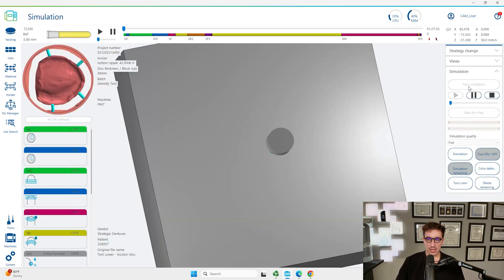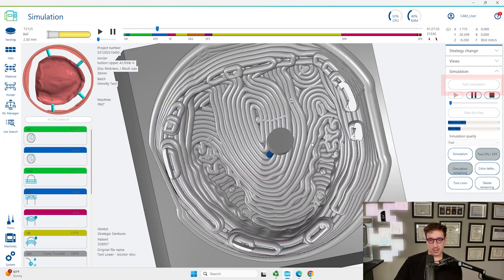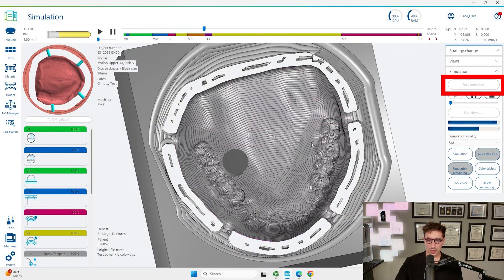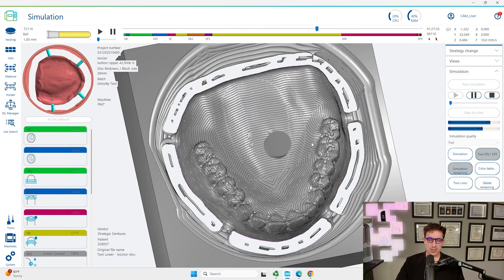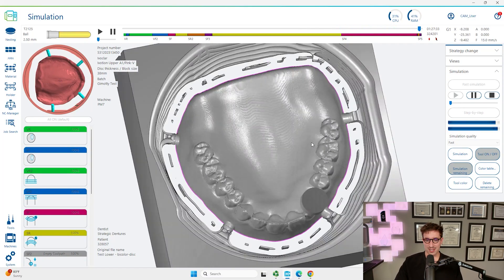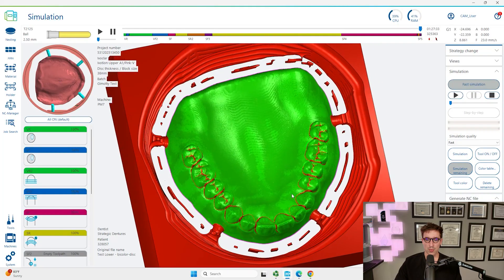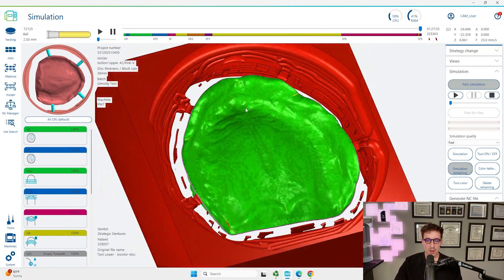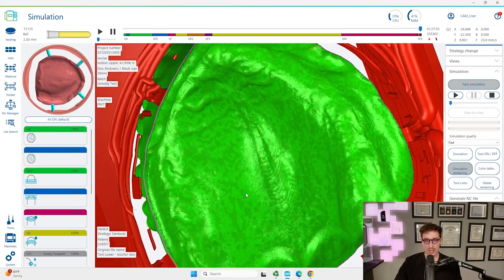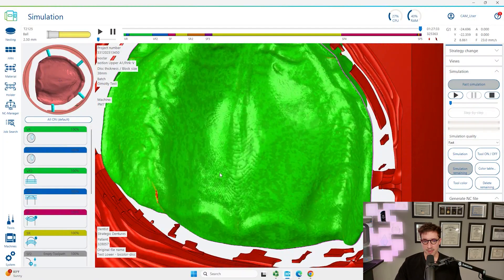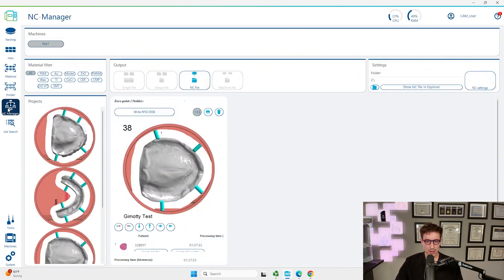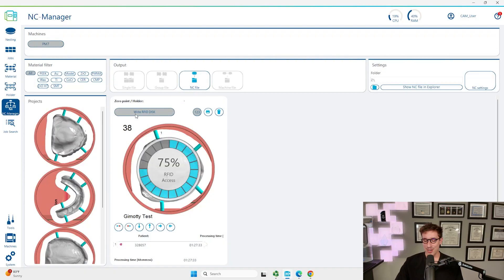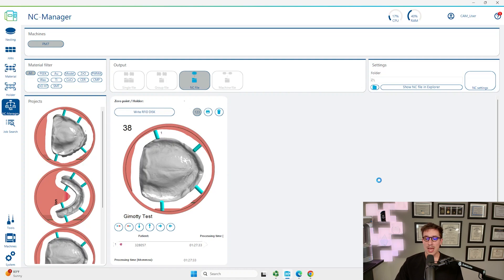Let's take a look at this maxillary one as well. I've done this exact case a number of times so I know it's going to be fine, but I want to show you what you would be looking for if there is an issue. We can see red all around the teeth which is fine. We can see a little bit of a red area in the posterior left portion of the intaglio surface, that's fine. What we're looking for really with this is any super large undercuts. If you're using a designer with these that really knows what they're doing, then generally speaking you're not going to see too many issues. We're going to write the RFID to RFID disk and then we're going to click on NC file which sends it to our milling unit.